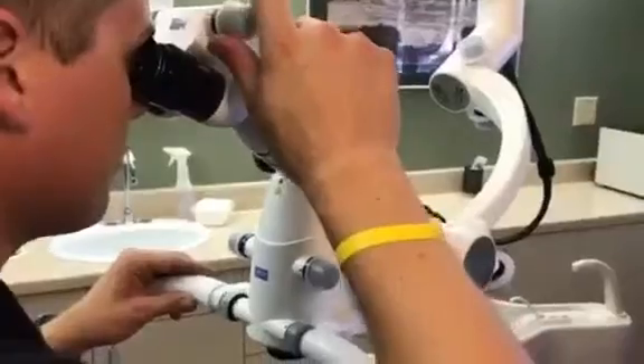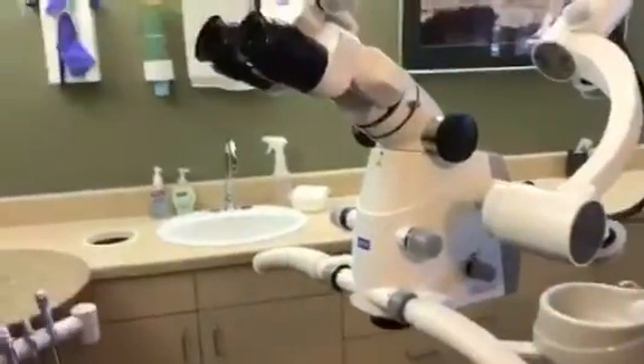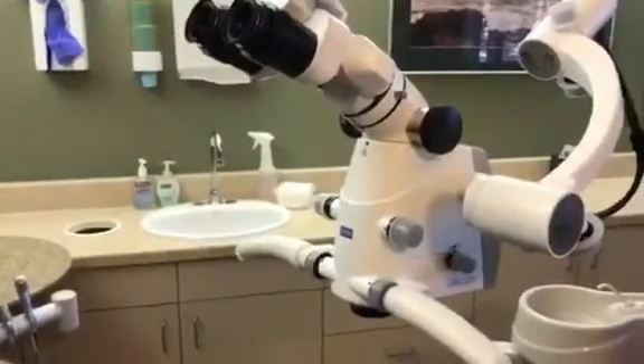There are no special settings for how to set your microscope — that's pretty much it. Or you can go to the optometrist, and they'll tell you exactly what your PD is, but that's kind of a bother.